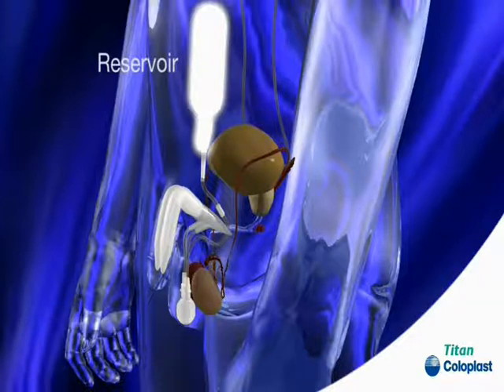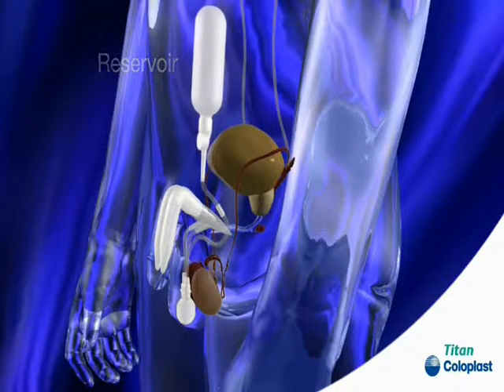The reservoir is located in your abdominal area next to your bladder. It simply holds the fluid necessary to fill the cylinders to create the erection.